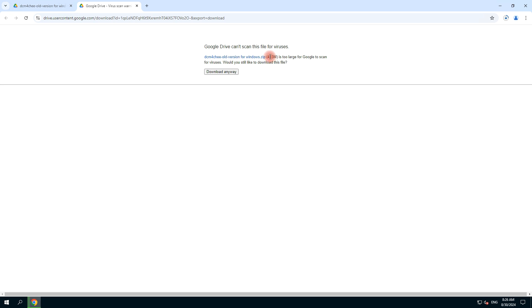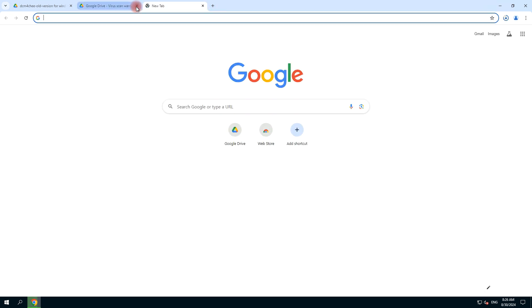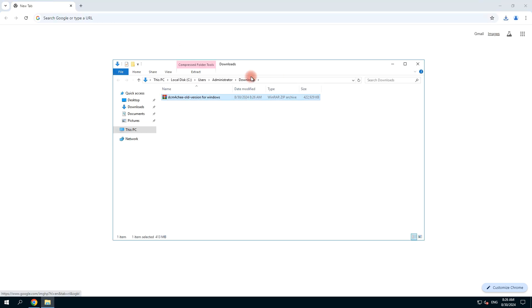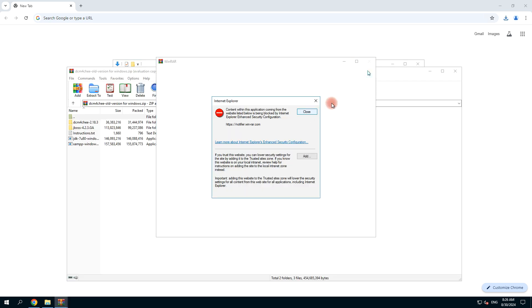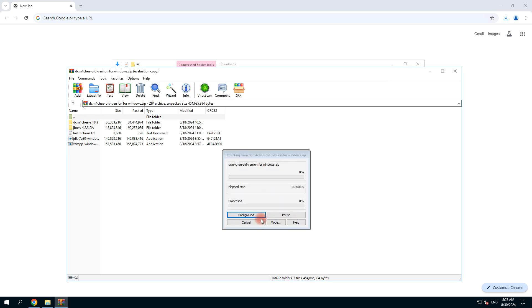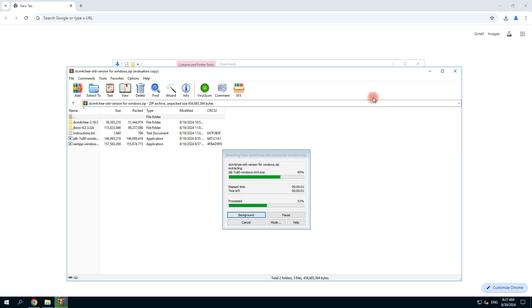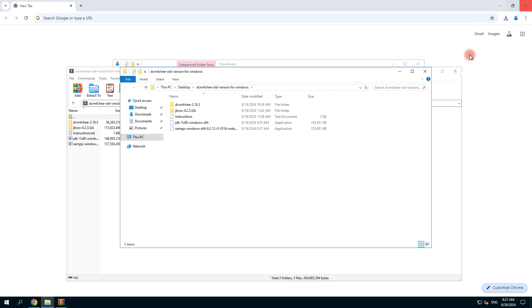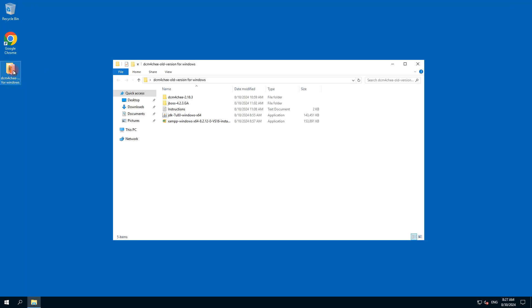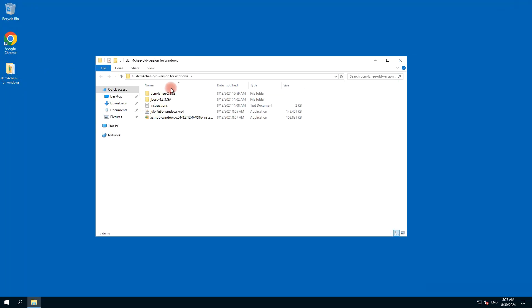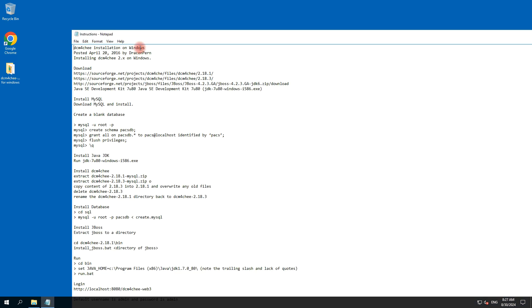This is a 413 MB file and it is a zip with all the mandatory files and requirements. I am now unzipping this. It's finished — it's on the desktop. Here is the folder. Let's start — here is the instruction in a text file.